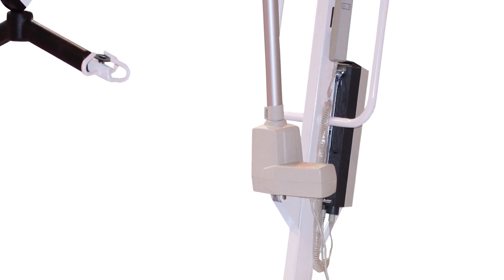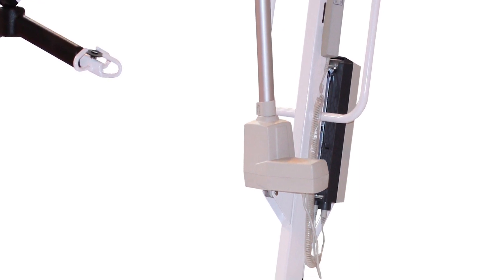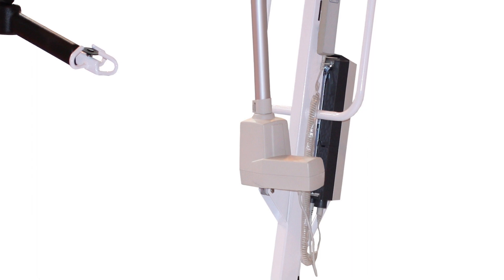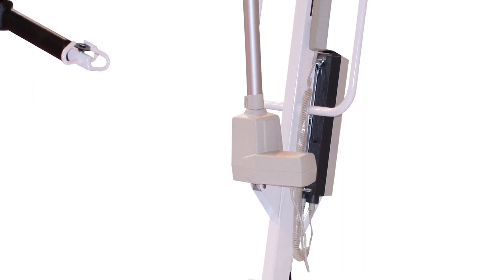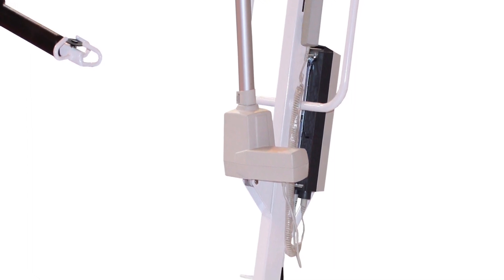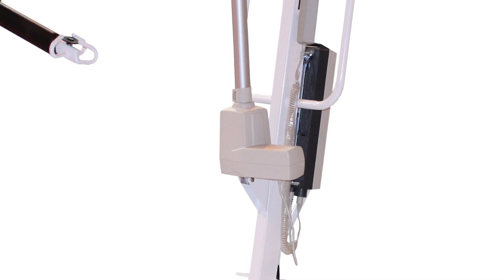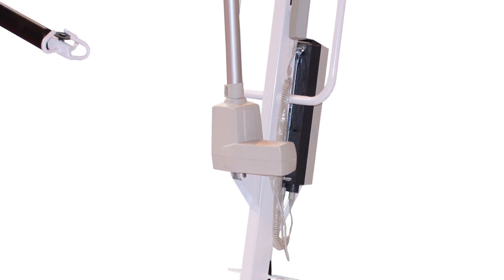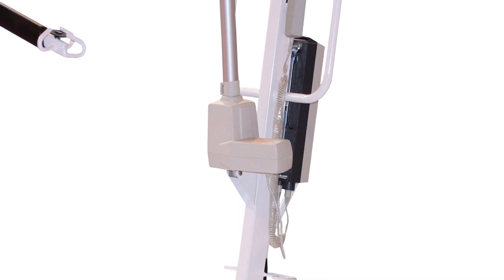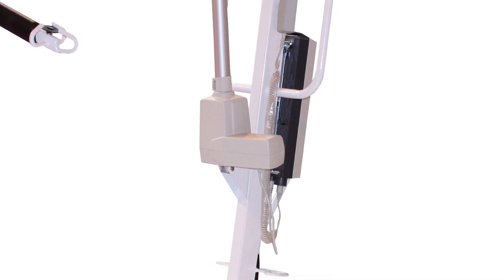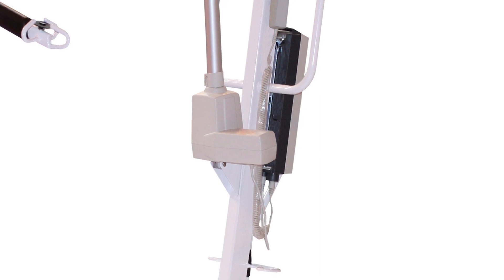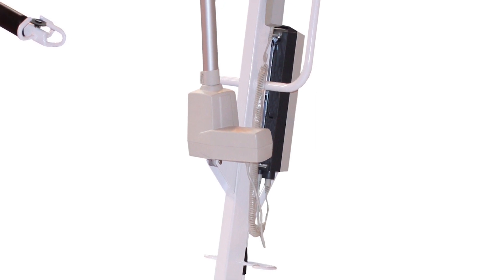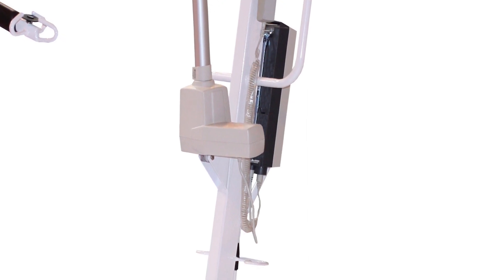Summary of tips on buying mobility hoists: Mobility hoists make moving patients from a sitting to a standing posture easier. There are built-in lifting mechanisms in the structure. Hand grips, lifting harnesses, and ankle and knee support belts on these hoists help lift whether standing or sitting.